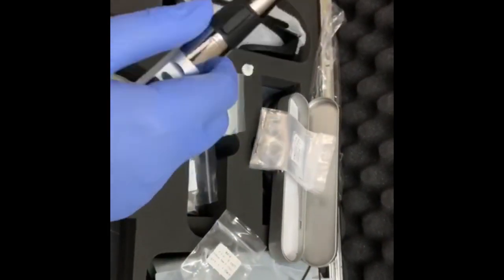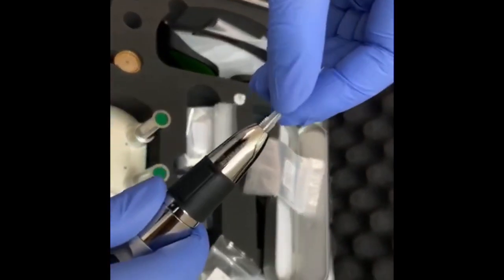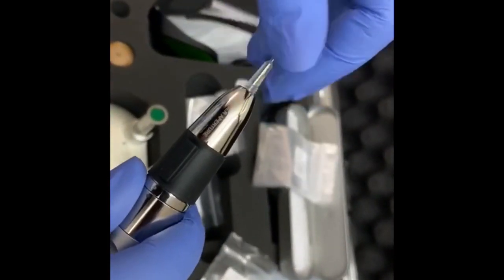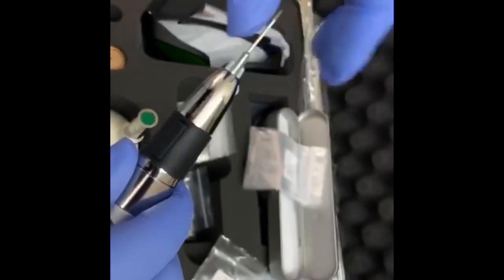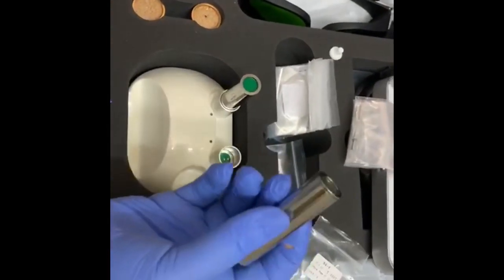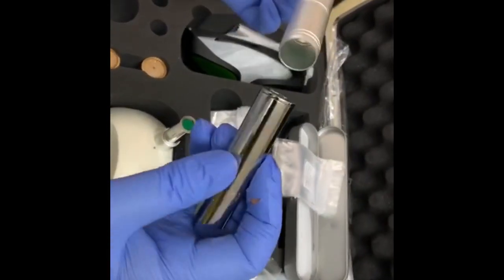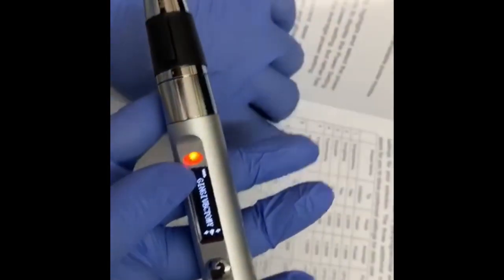I am placing this tip here, just like this. You can see here. These are the two rechargeable batteries. I am taking one of them. It is already charged so you directly need to place it.